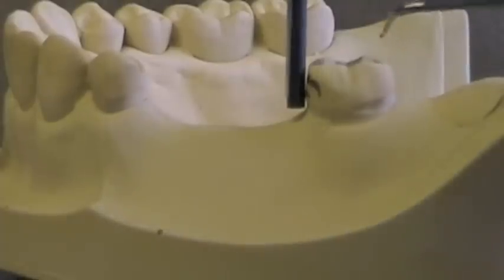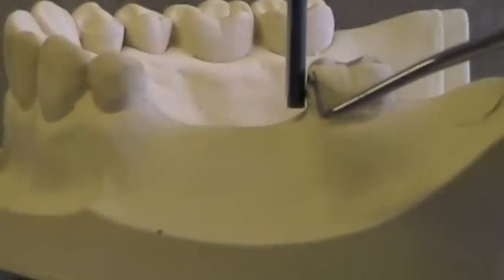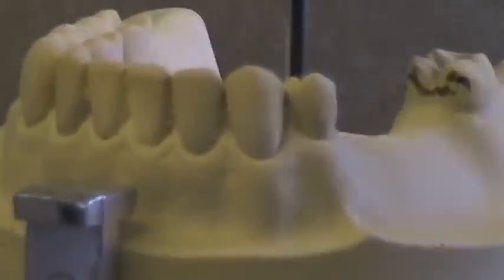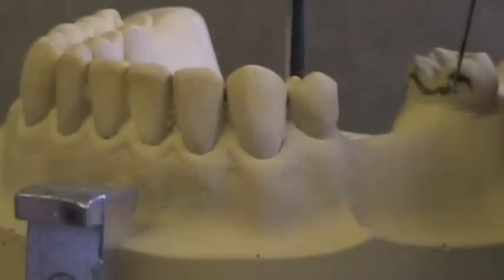Here's a guiding plane that's acceptable, but it's not perfect. You can see there's a little bit of gap up toward the occlusal surface, but on the proximal surface we've got two to four millimeters of height. Watch the corners — mesial buccal corners, mesial lingual corners, all those proximal corners. You can see the height of contour coming up high at those corners and getting very minimal. You want to round that corner and make sure that height of contour stays low.